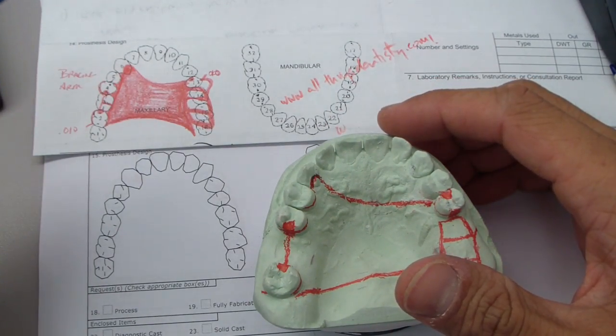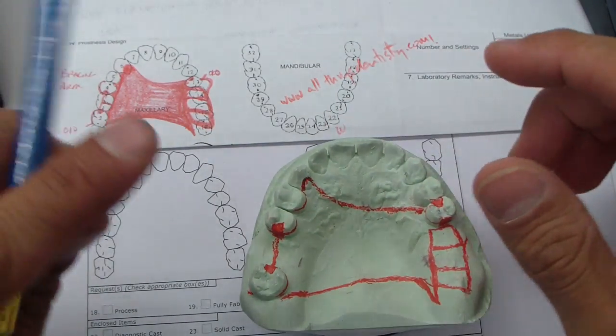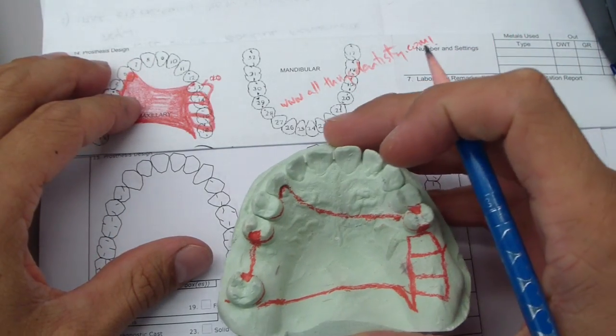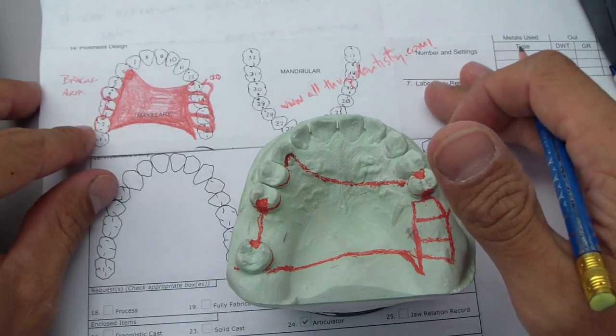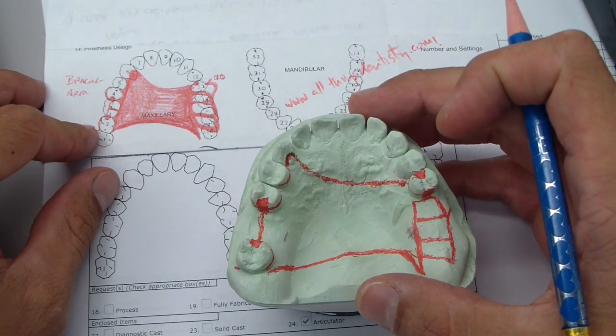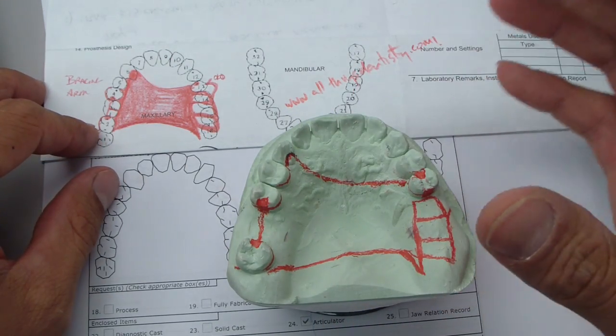Hey, welcome back. Ashley at allthingsdentistry.com. I'm just about to submit this lab prescription for a cast partial denture for this patient, and I wanted to go over the drawing and a couple key concepts that were brought to my attention recently.